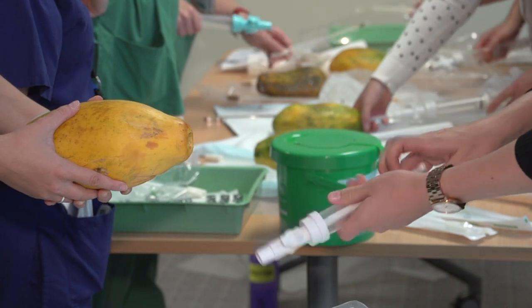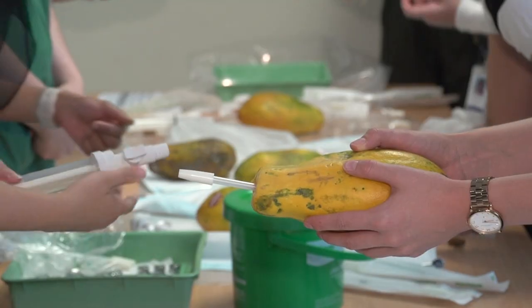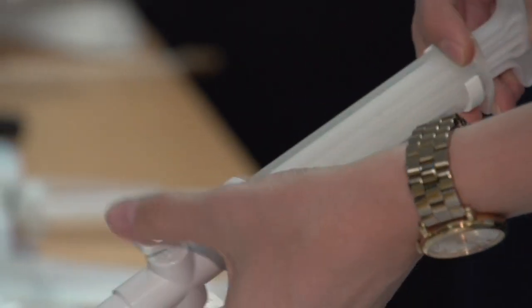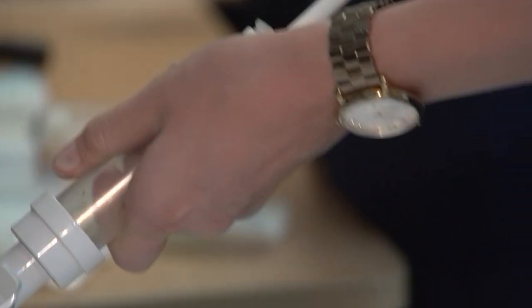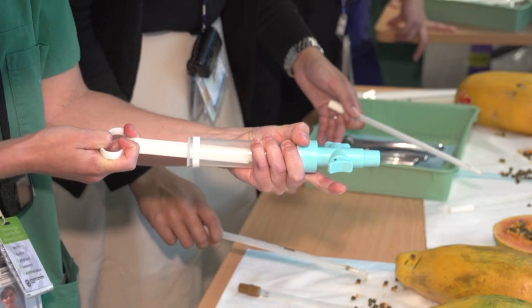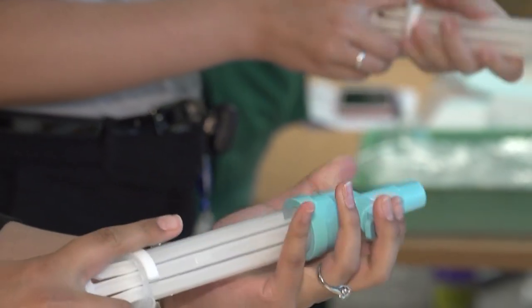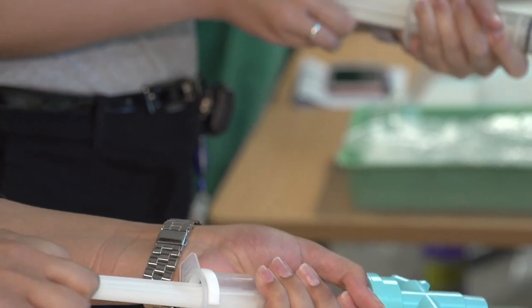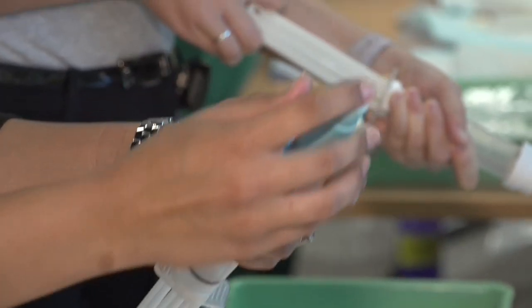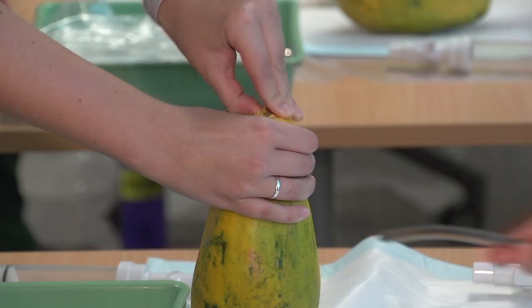Practice making a suction vacuum in the syringe — shut the port and then pull back on the syringe. It has little wings that pop out which stop it from plunging back. You always want to be withdrawing material from the uterus; you never want to be squirting material into the uterus, and that's your safety mechanism. If you put your finger over the end and release it, you can feel the suction that you've created.